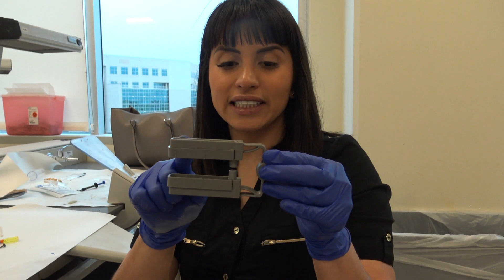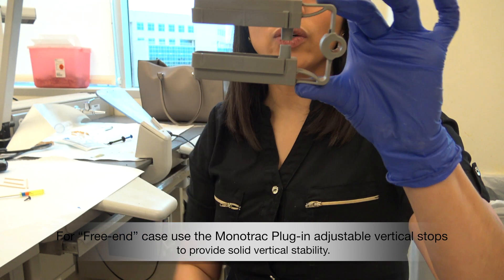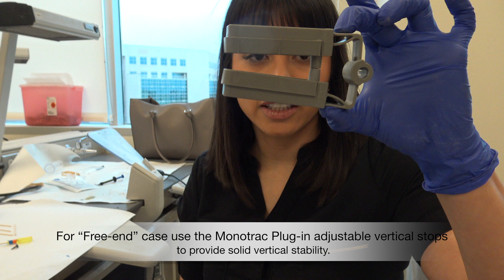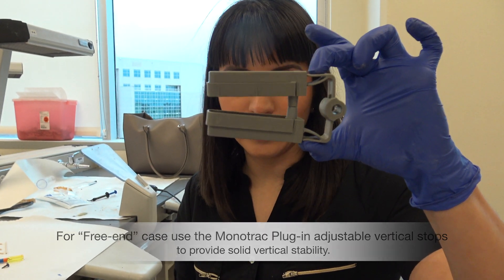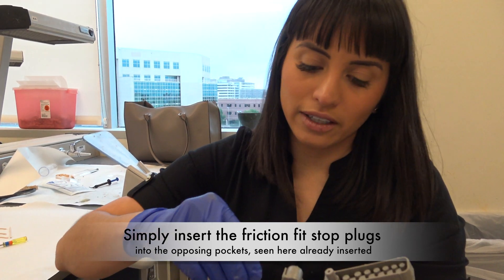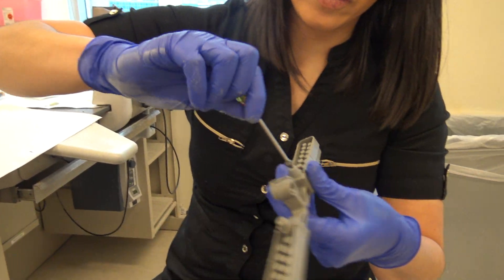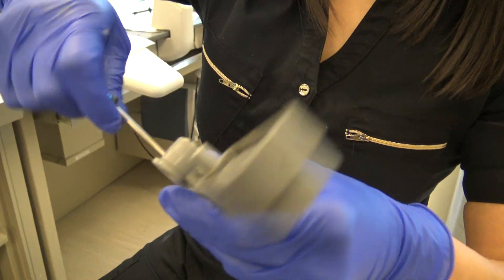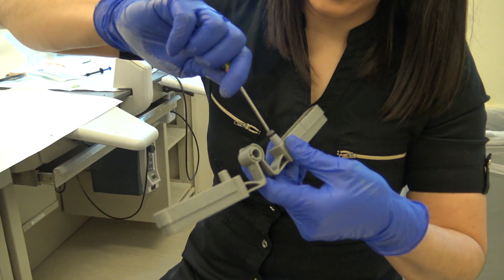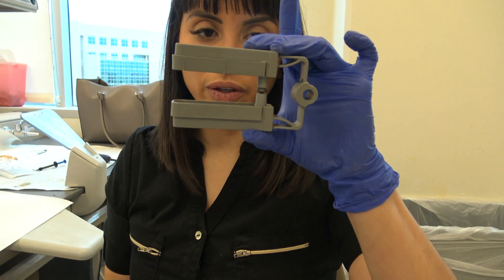When the base is fully seated down on the hinge, you'll have to press really hard. You'll see when you close the articulator that there is a small gap, so if you over-close it you can have a little bit of bending that occurs. To avoid that, we have the screw. You can use a screwdriver to screw it in because it won't go past a certain point, to be able to get it to proper closure.